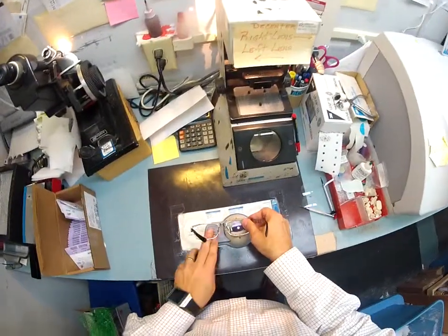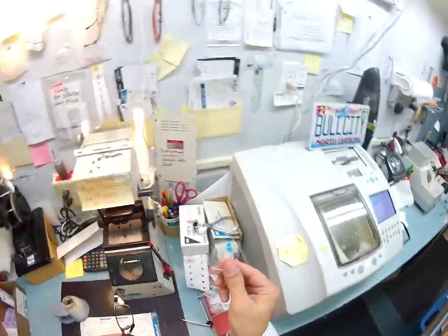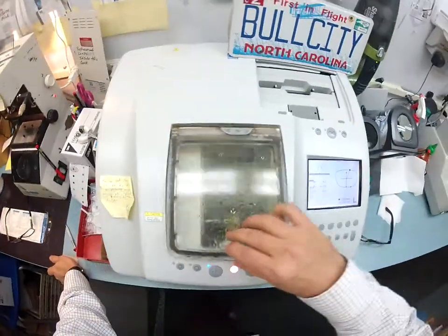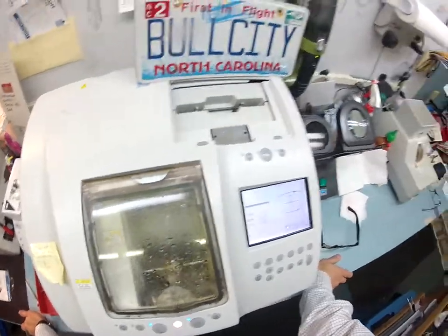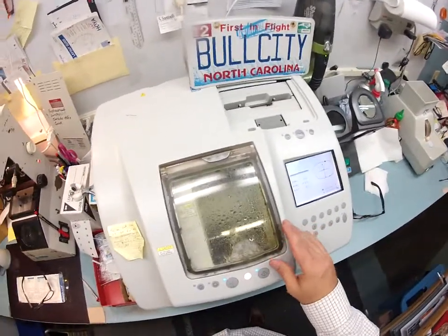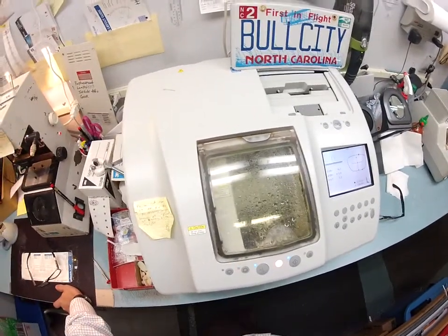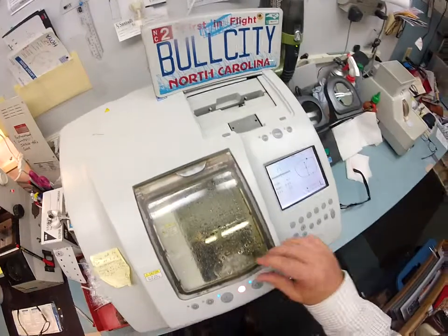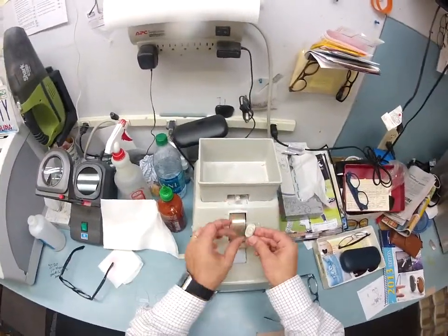I'm going to de-block your lens — pulled the little sticker off and trashed the sticker. I will wait for that to cut. Your original lenses will be included back to you, so years from now if you ever want to sell this frame, you will have the original lenses that came with it. It is now putting the safety bevel on and giving itself its own little bath. Anyone who orders a pair of prescription glasses gets a video watching their glasses being made. I just shipped two pair of glasses to Germany last week.